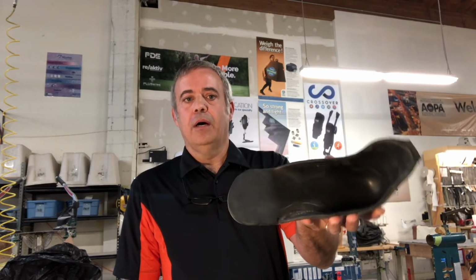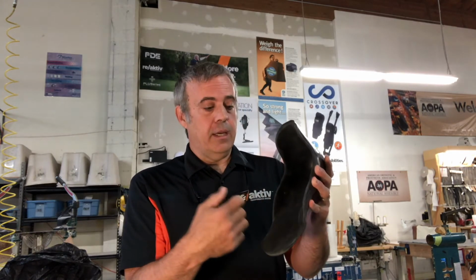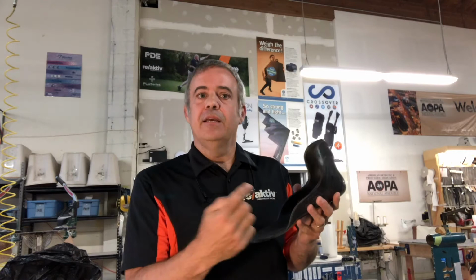Here's a foot plate that was recently delivered. In that, a determination was made that we needed some more reliefs added, and we needed to make a few changes in the rocker. So instead of redoing the entire brace, what we're able to do is to do a transfer on this. In doing that transfer, I have to be sure that this anchor position is exactly the same in relation to the foot, so all that effort we put in getting the initial brace aligned wasn't wasted.